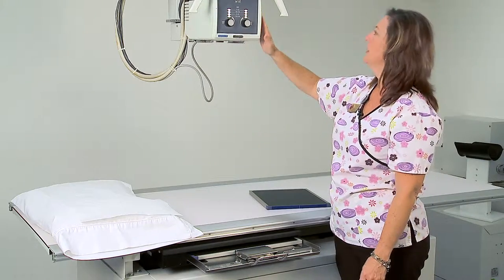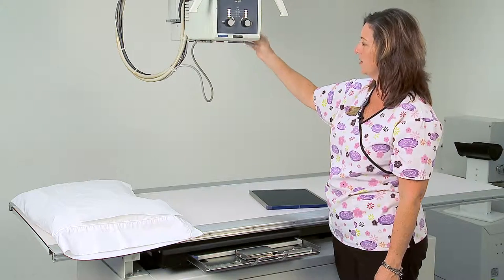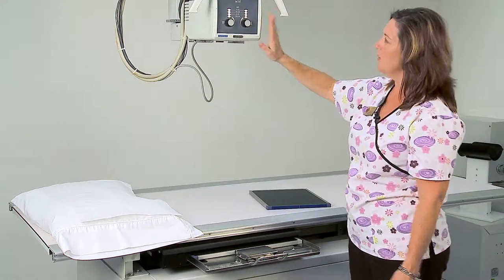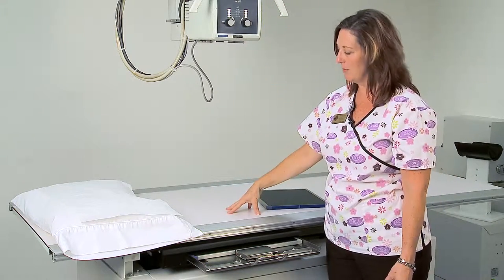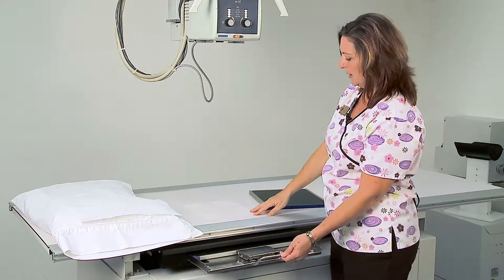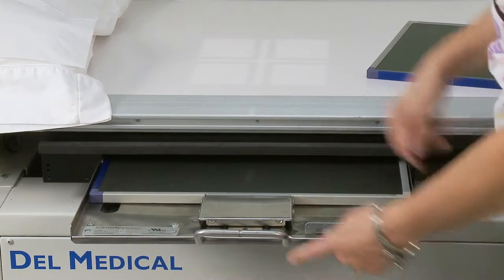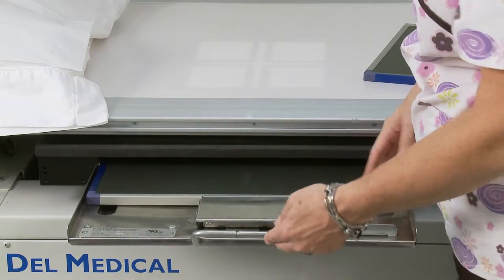You can see it's 37.7 inches to the table top. If you also need to pinpoint exactly what your distance is, there is a tape measure located on the side so you can always check and verify. Once we're at a 40 inch SID and detented to our table, our tube is detented to the table bucky. Then we are going to align our tube to our image receptor by depressing the button.